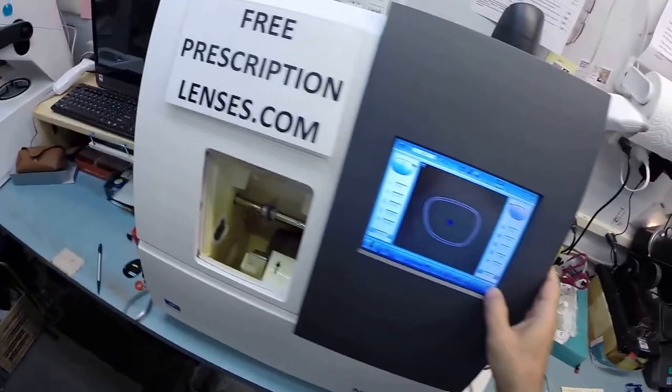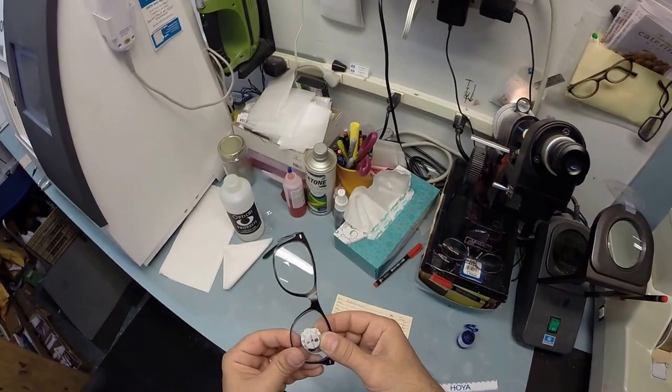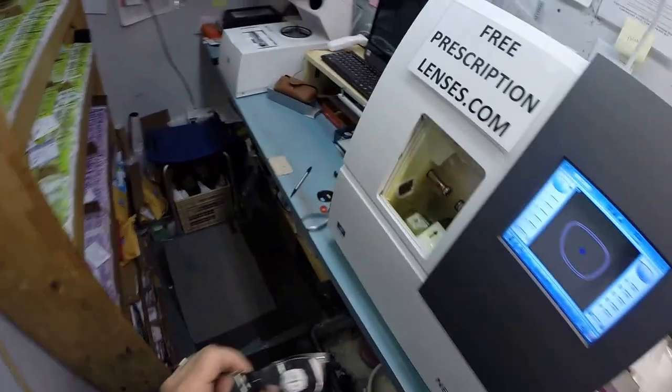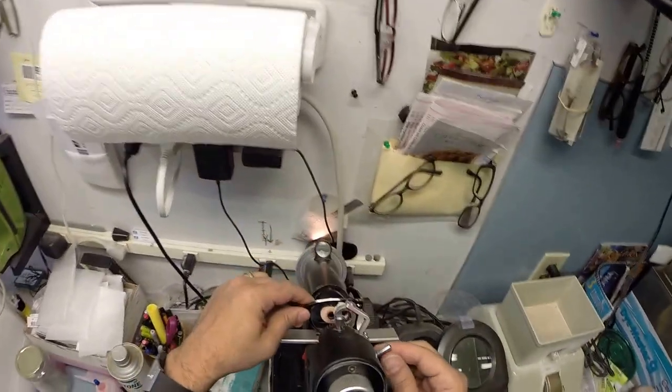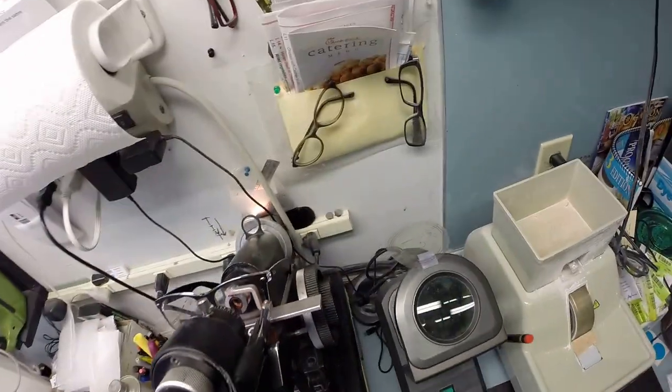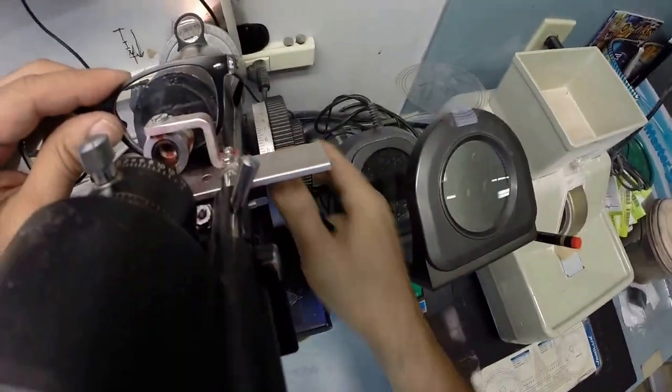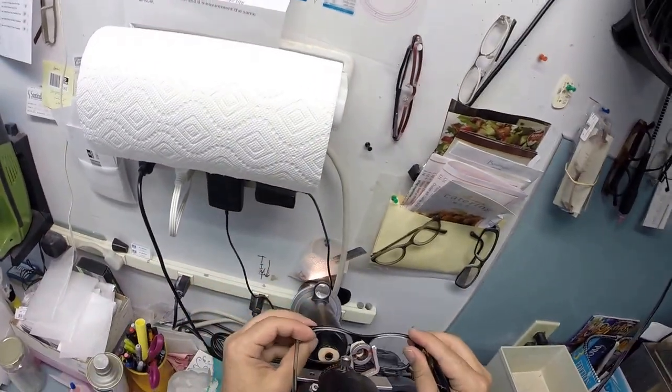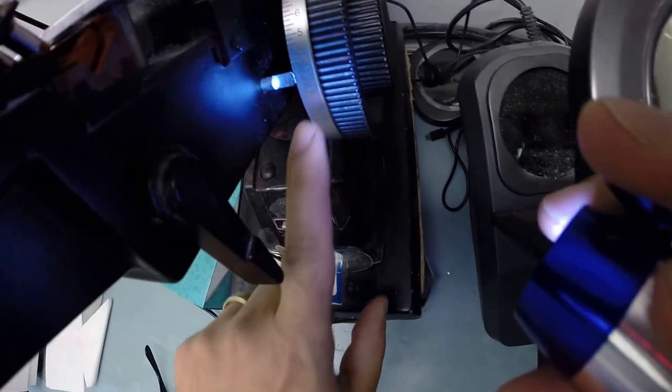Now your left lens is done. Let's go ahead and take that out, dry it off, and find your frame. We are going to tuck the left lens in at the outside corner using my thumbs. I press down. That snaps in there. We are going to take the block off and let's go down, read the power of the left lens, and I am getting plus .75 again. Let's raise it up, read the power of the bifocal. And yes, I know there are purists out there that say you have to turn it around to read the bifocal power, so I will make them happy. And what do you know? We still end up at 2.75, no matter what direction I read it from.